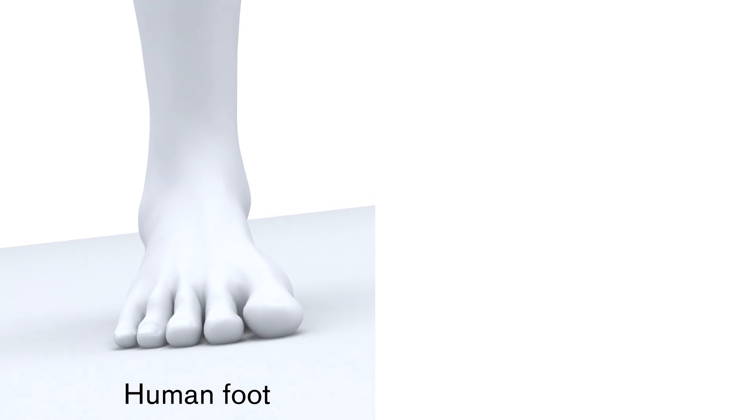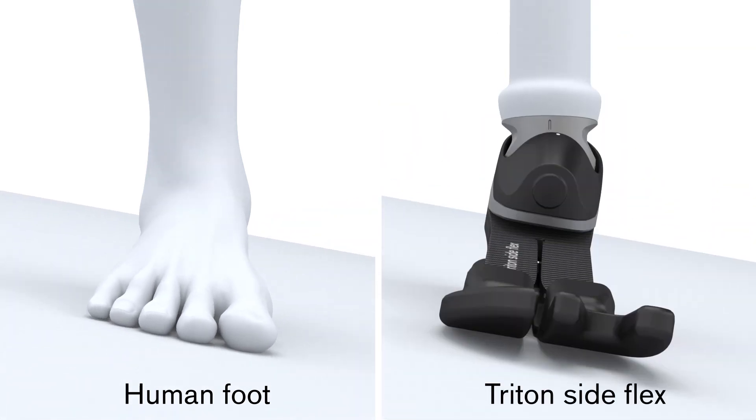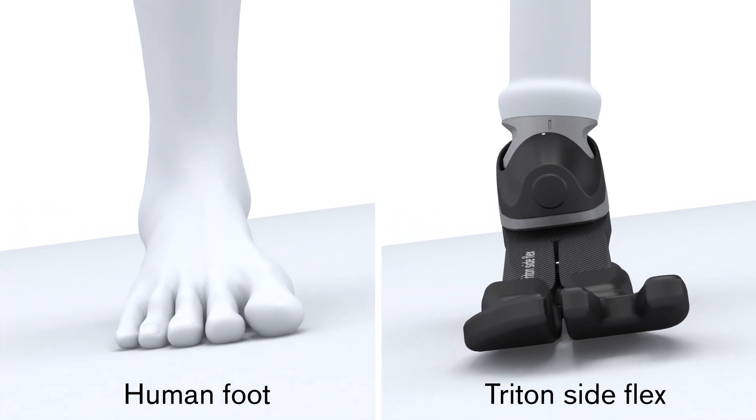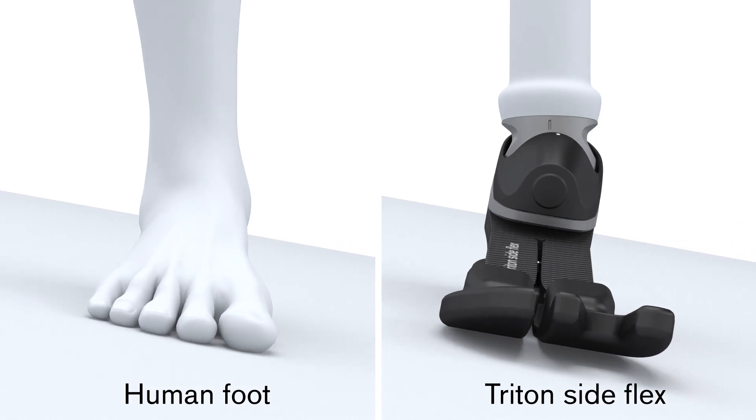standing wide or stepping to the side. The Triton SideFlex offers a unique ML unit on top of the triangular platform, providing inversion and eversion.